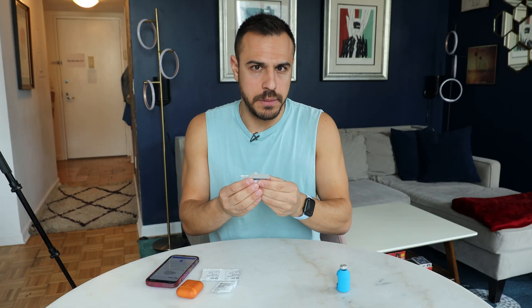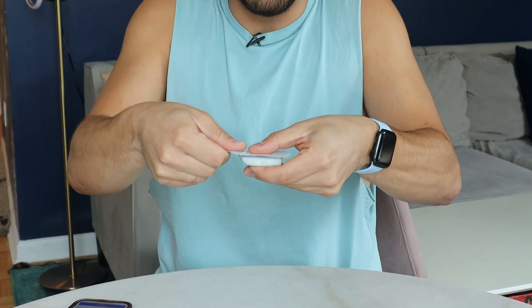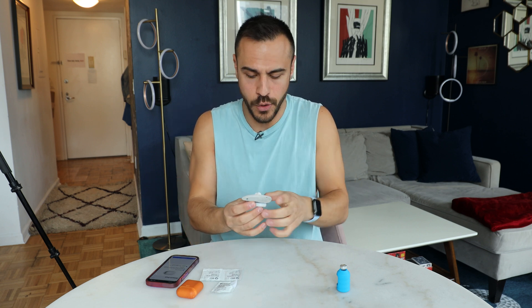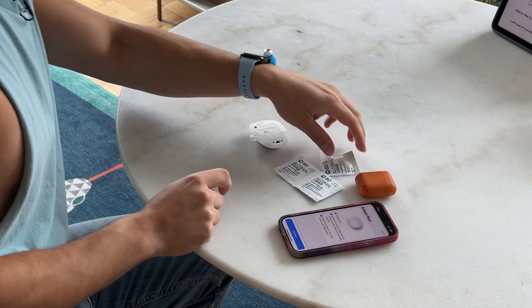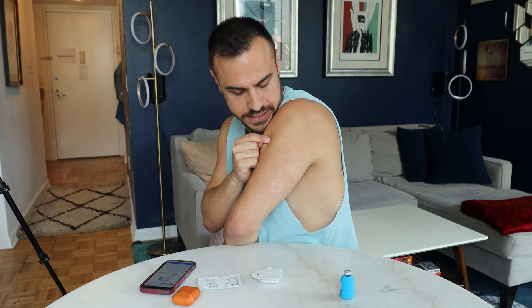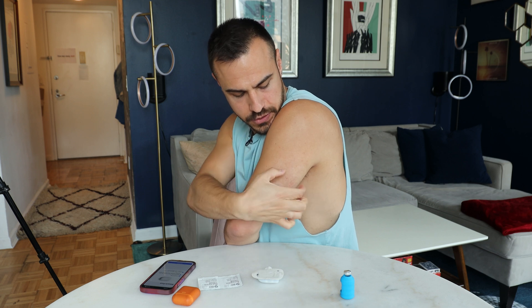What I've got to do next is take off this tab with some force. There we go — the tab is off and there's some insulin that leaked out, which is totally normal. Now there are two stickies here. Before I take those off, I'm going to use an alcohol swab to clean off the area of my arm. Sometimes I use birthmarks on my arm to remember exactly where I cleaned, since I'm not using a mirror.